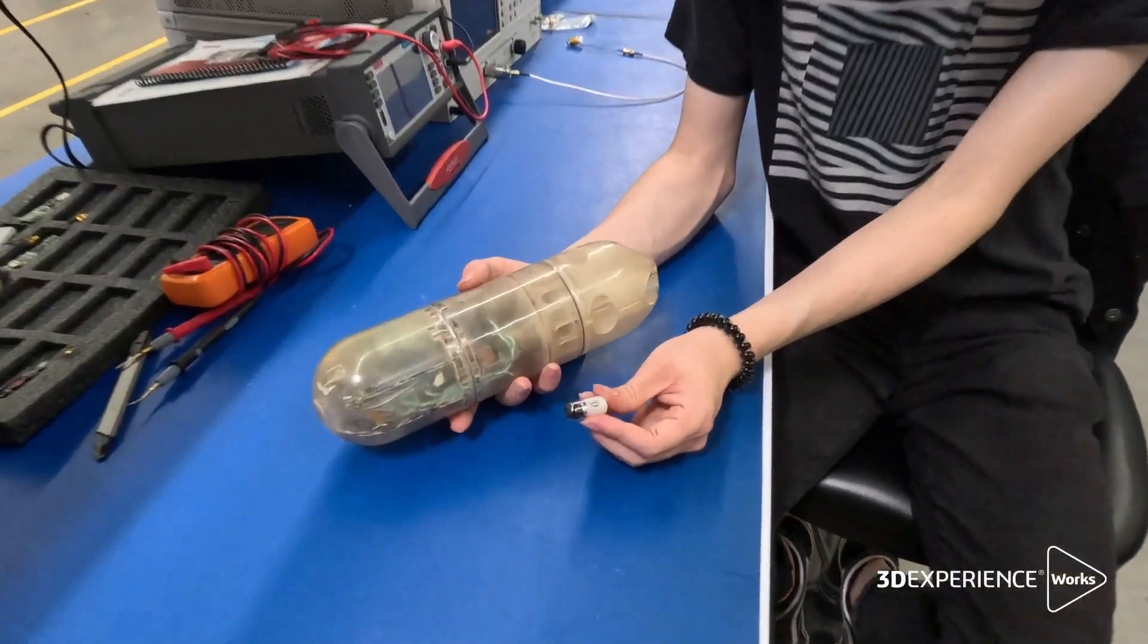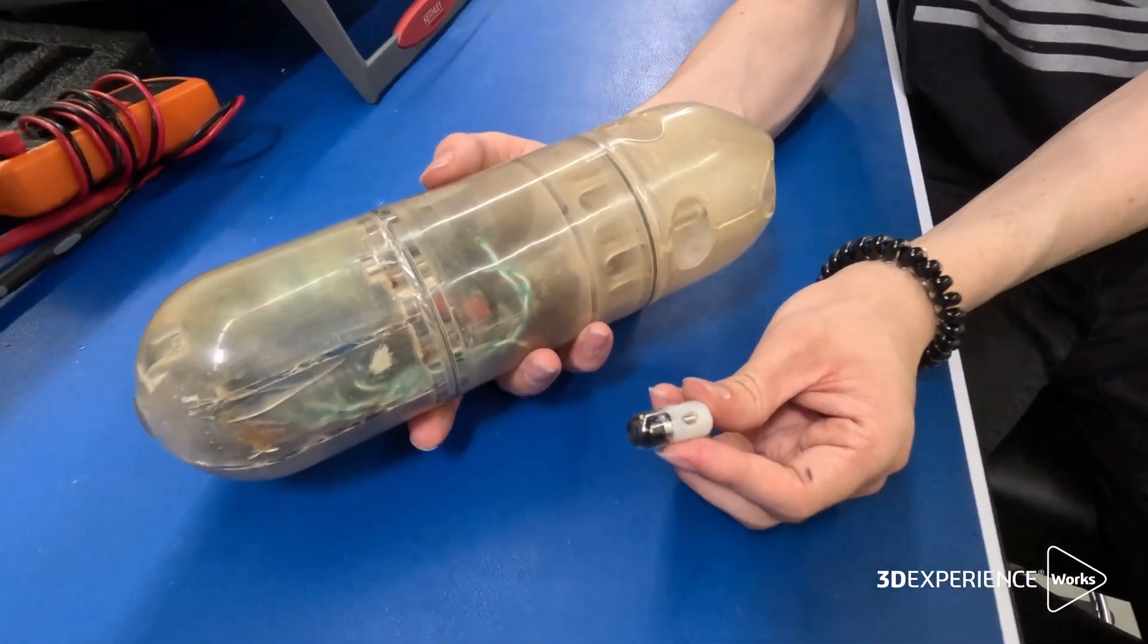So once we had the idea, the challenge was how do we get from this large thing to this 13 by 30 millimeter pill.